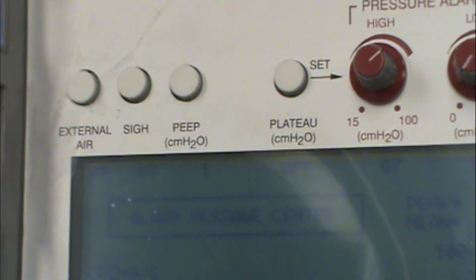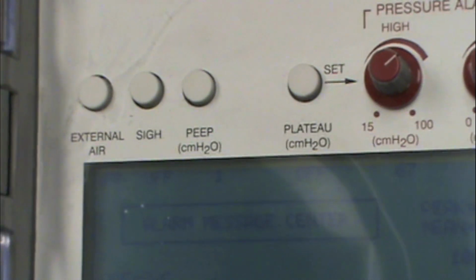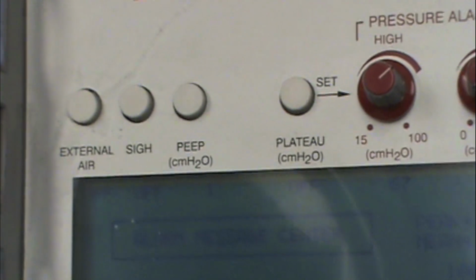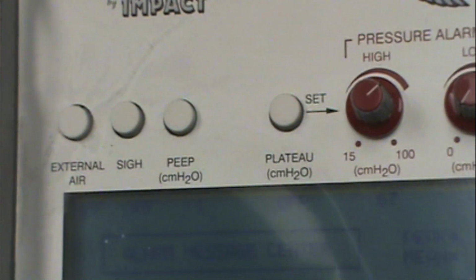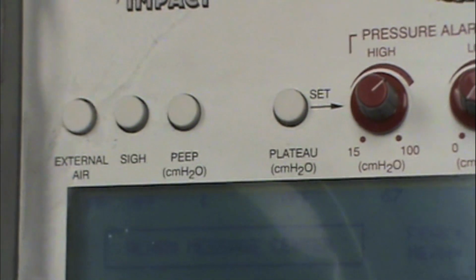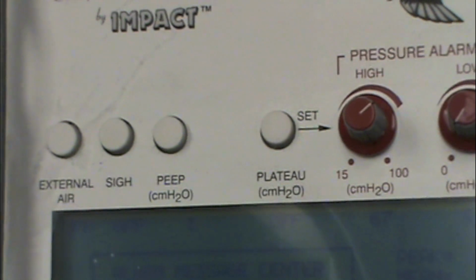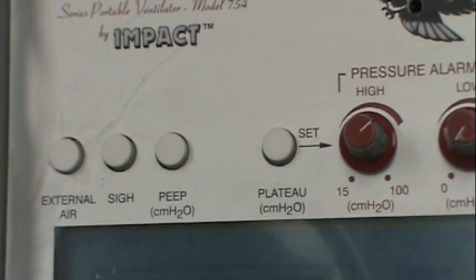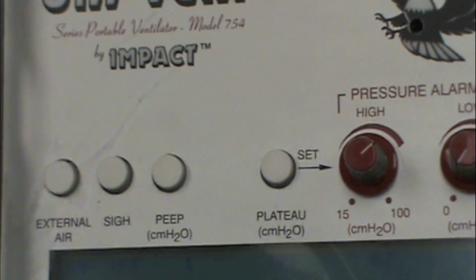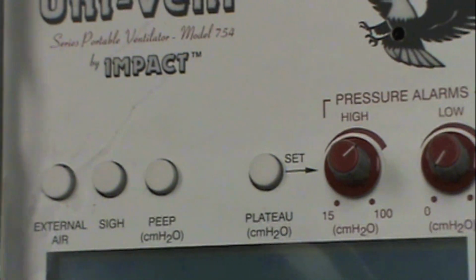So for a standard patient that you're just wanting to maintain normal physiologic parameters, a PEEP of 5 is adequate. If you have a patient that has congestive heart failure and they have a lot of pulmonary edema, and you're trying to control for their edema, there's a delicate balance between regulating their blood pressure and regulating the amount of edema that you can clear out with a ventilator. So I would only set the PEEP high enough to help clear out the alveoli without causing a drop in their blood pressure. So if you see their blood pressure drop in response to your PEEP, then you need to go down on your level of PEEP.